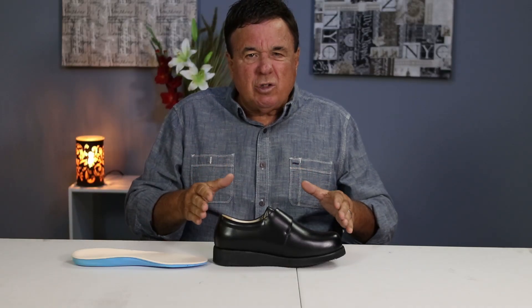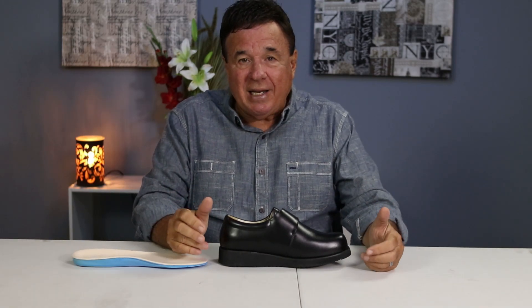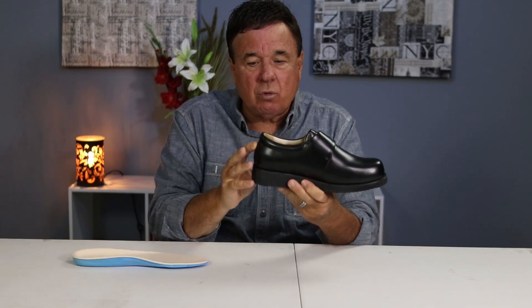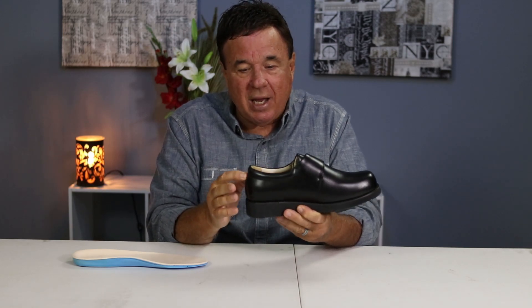But this is what this video is about. It's talking about this 9502, that's a men's style in the Velcro — single Velcro — and why it's unique and different than most footwear or shoes that you find out there. We're a therapeutic orthopedic footwear, and we have a higher toe box. We have the strongest heel counter in the world, and that's a four-ply leather wrap from that point — you can't crush that.